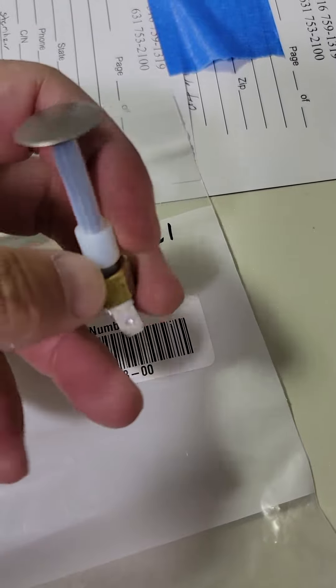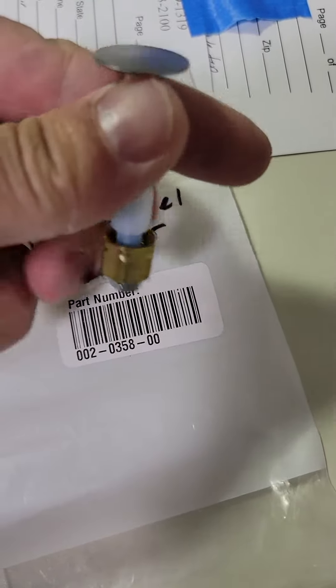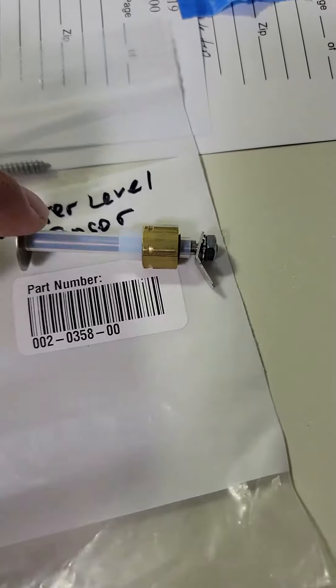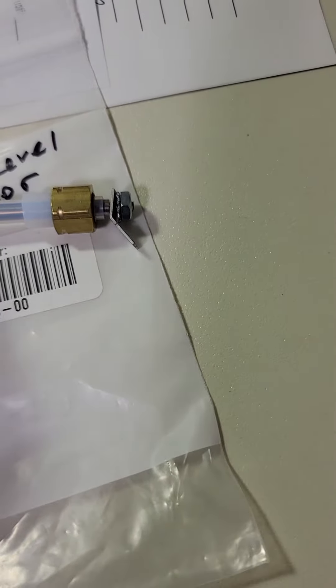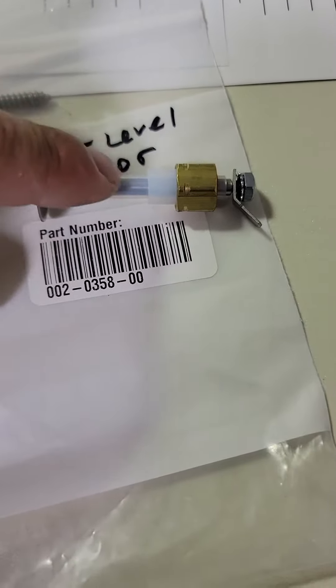Notice it's just a flat disc — no electronics, nothing special — but in the back you see this sleeve. This sleeve prevents, it blocks the path between this plate and the chamber itself.